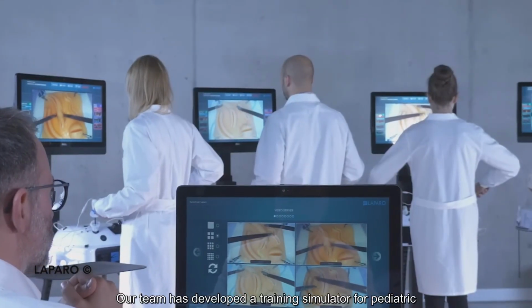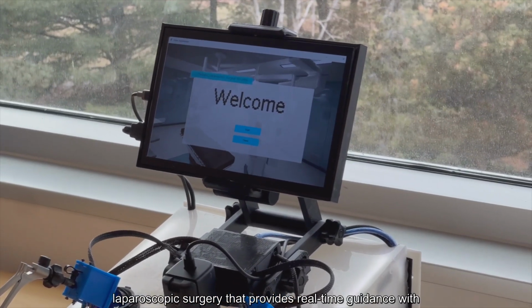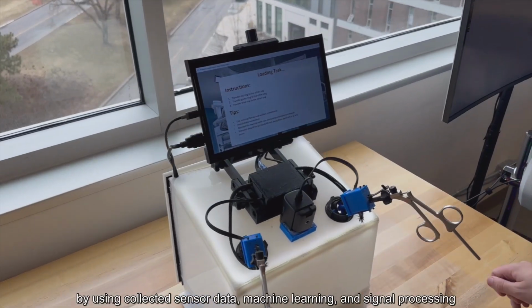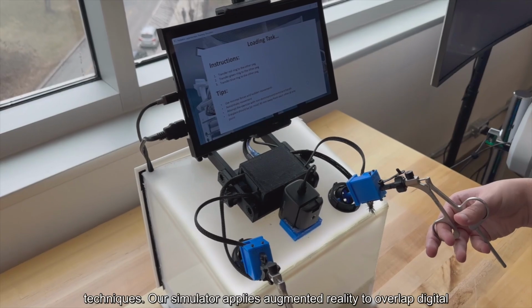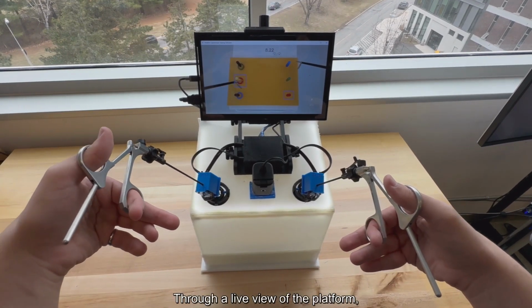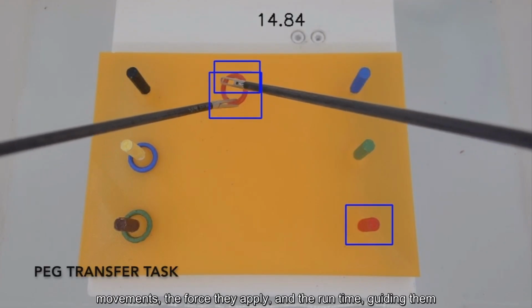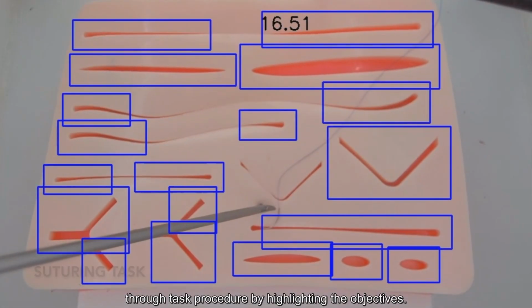Our team has developed a training simulator for pediatric laparoscopic surgery that provides real-time guidance with various forms of feedback and reduces reliance on expert supervision by using collected sensor data, machine learning, and signal processing techniques. Our simulator applies augmented reality to overlay digital information on the physical environment. Through a live view of the platform, the simulator is able to alert the trainee to their hand movements, the force they apply, and the runtime, guiding them through the task procedure by highlighting the objectives.